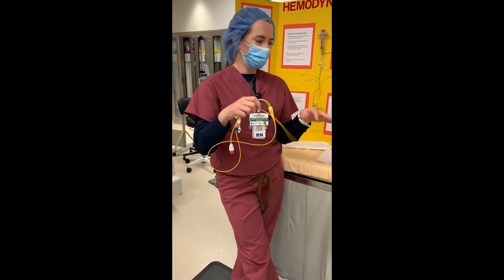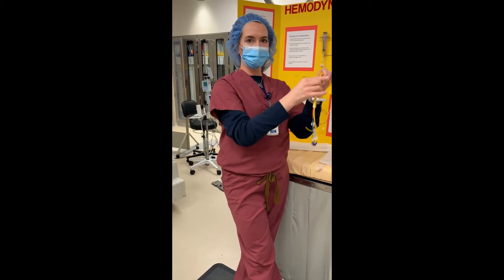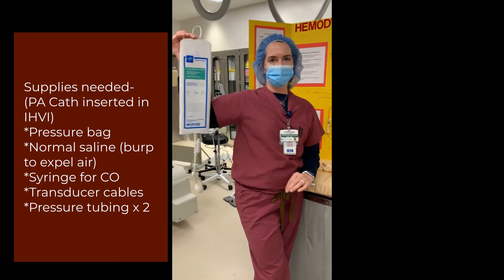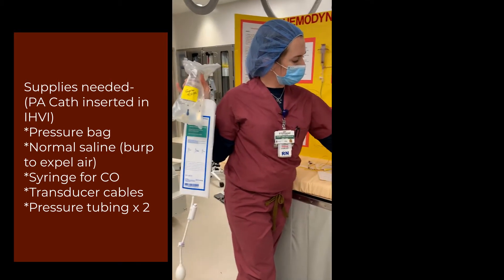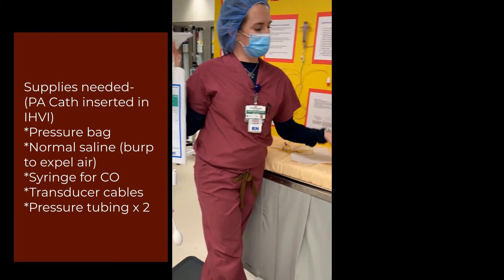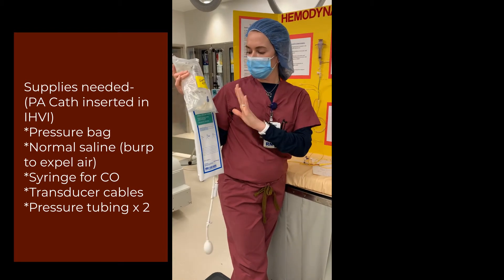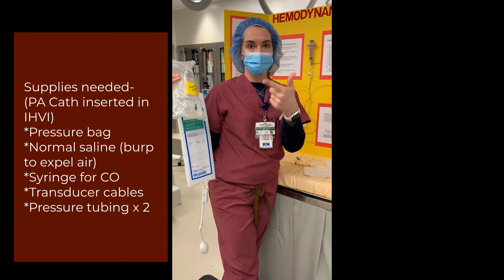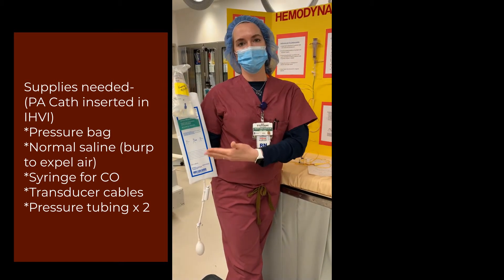You can also draw blood from it. So those are the basic components of our Swan. When the patient comes up to you this will already be in the patient. The things you are going to need on the floor are a pressure bag, your flush fluid, an injectable syringe, cables to plug into your monitor, and pressure tubing. Since you have a PA and a CVP you're going to need two pressure tubing setups — one to monitor your CVP and one to monitor your PA.